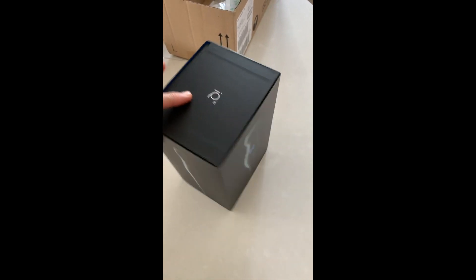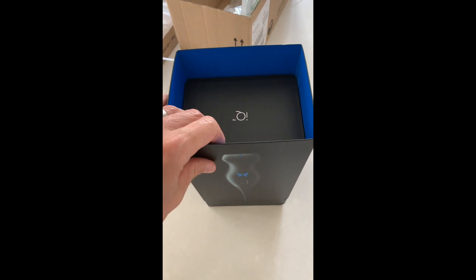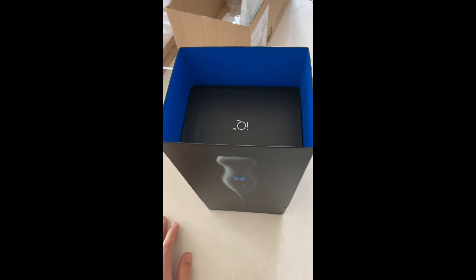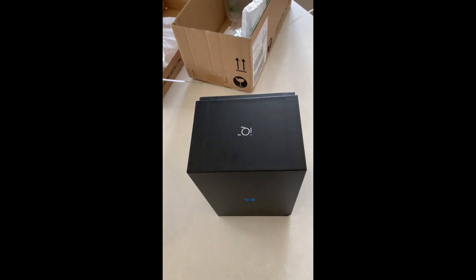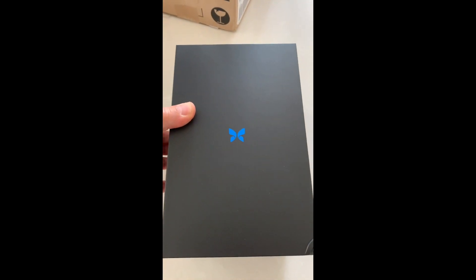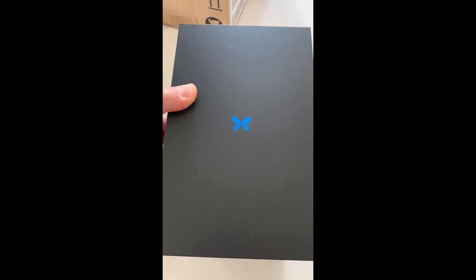This is the Butterfly IQ. And I was very, very lucky to be the first guinea pig in the UK for delivery on this, apparently. Being at work, I love that. How sad is that? Being the first in the UK to get one. May not have been the first in the UK to actually open one, because I wasn't in for the first delivery, but here we go — unsheathing this bit. There's your box. That symbol, which I'm sure everyone's going to become extremely familiar with over the next few months, certainly, if you're not already.